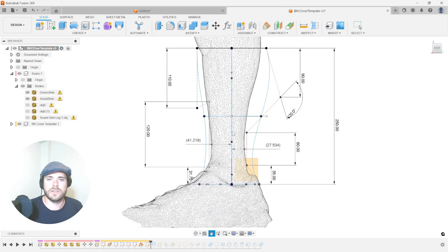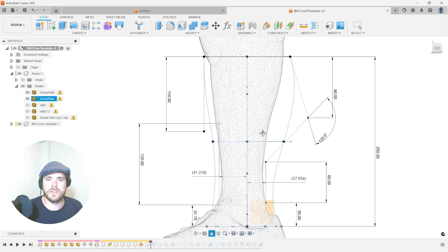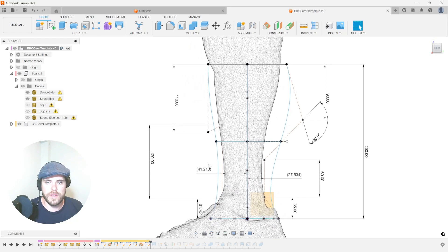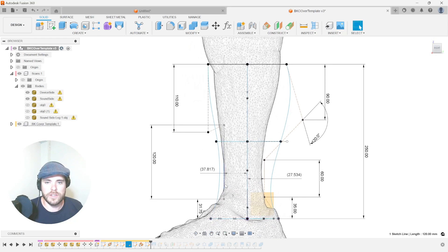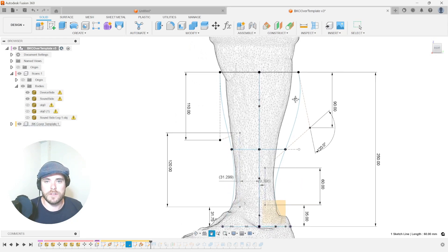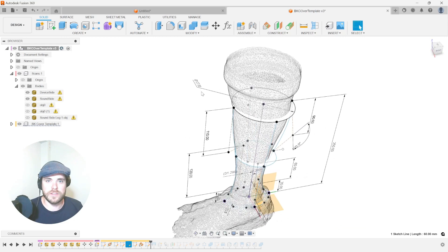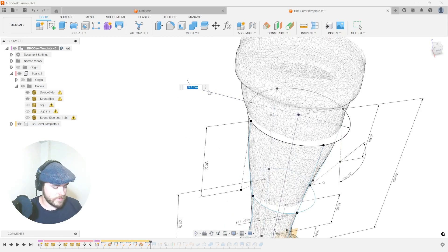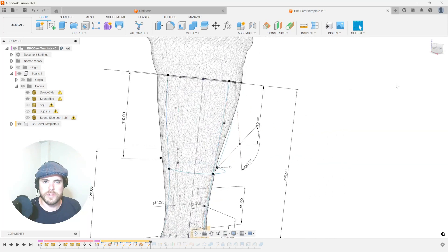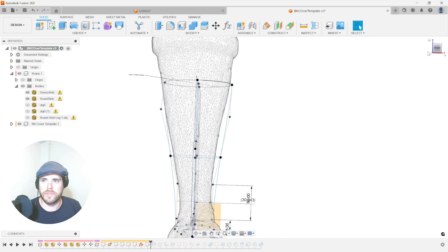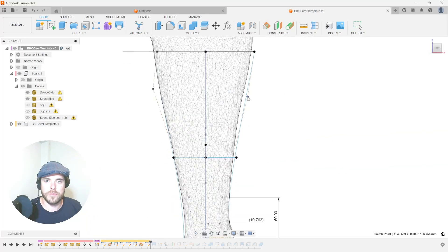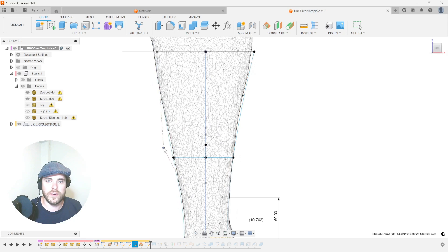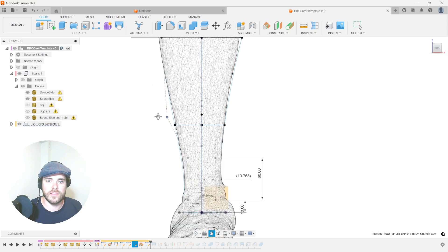So we're going to start off medial lateral view, and we're going to be able to use our template to quickly just pull these in. We're going to be able to move now and adjust diameter. We're going to look at this from the front, and we're going to pull this in just like so, pull this out just like so, matching those lines.